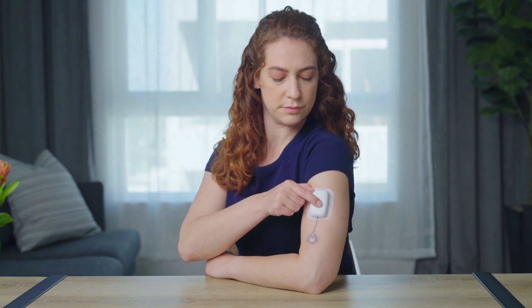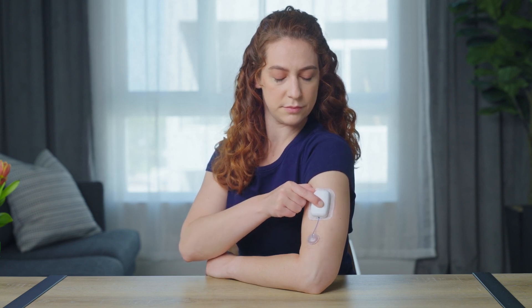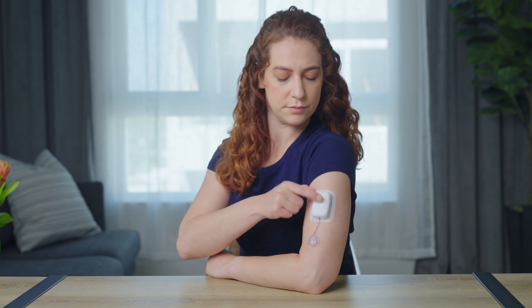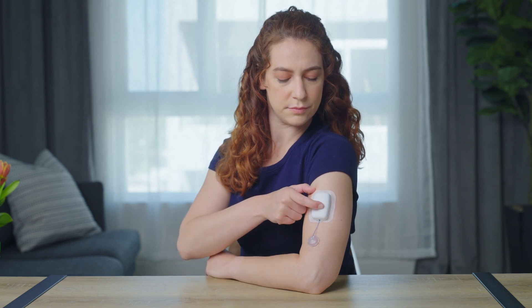It's simple to initiate a bolus delivery by interfacing with a single control button. A long press initiates the bolus mode. Five repetitive presses have been entered to represent a 10-unit bolus. The pump provides feedback through ascending tones, and once the user provides the confirmation press, the bolus will start the delivery.